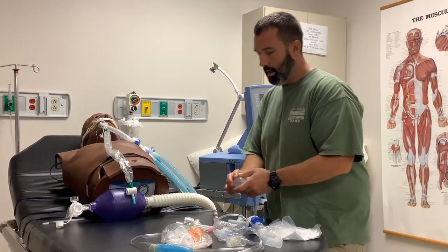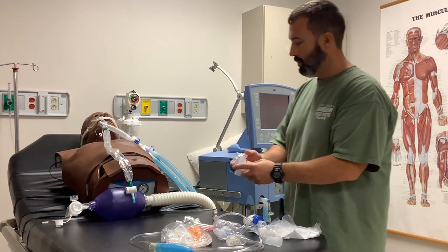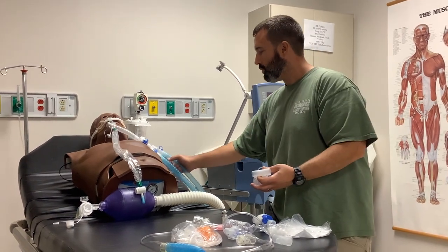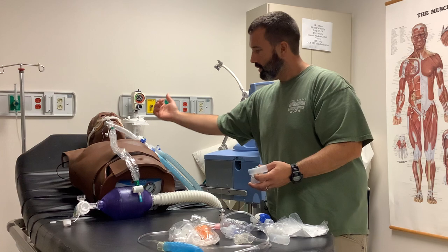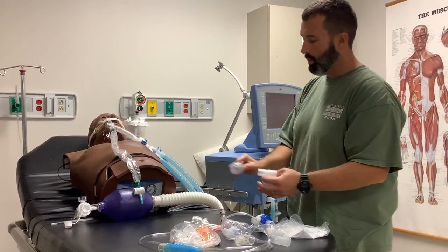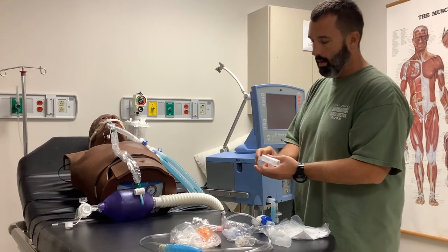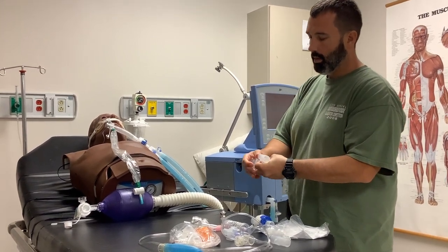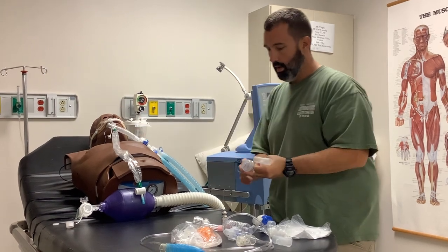When you're given an MDI or neb, when you place this in line, you want to make sure that you put it on the actual inspiratory limb. You can place it between the Y and the patient, but you've got to be aware that you're increasing their dead space by that much more volume if you happen to put it in after the HME.